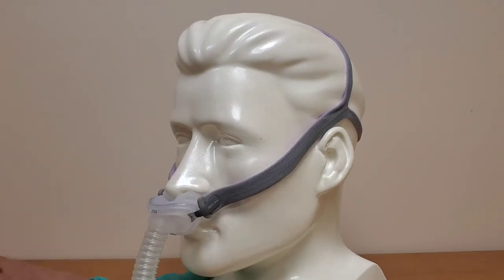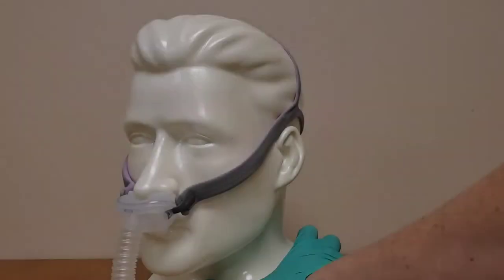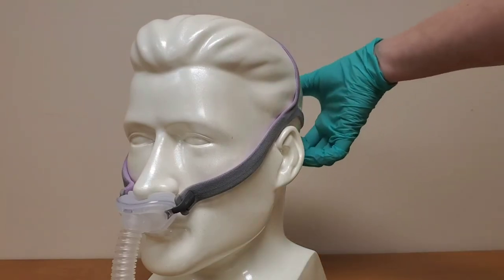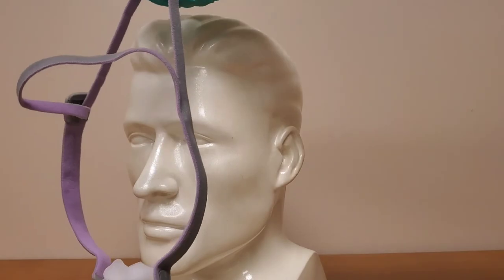Now we bring our attention back to the nasal pillows and pull down just a little on the mask to get them situated comfortably in your nostrils. When you get up in the middle of the night you can simply slip your mask off and set it aside until the next time you need it.